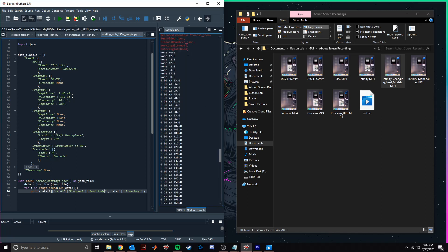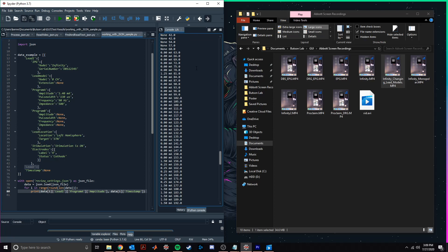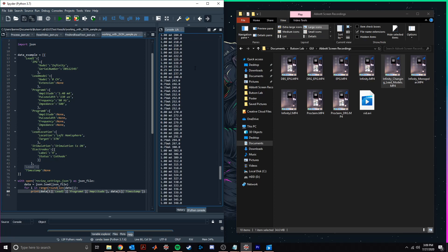sampled from our screen recording. These recorded amplitudes will match the sequence of changes made to the device settings throughout the programming session. And this is also the case for each of the settings listed in the example structure on the left.